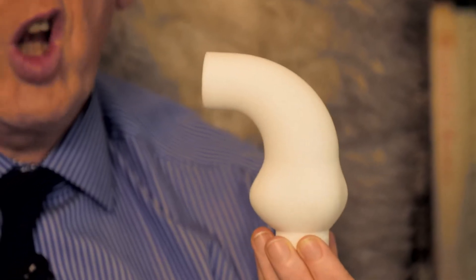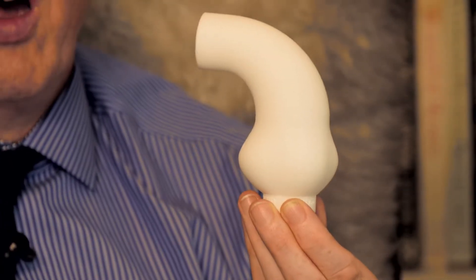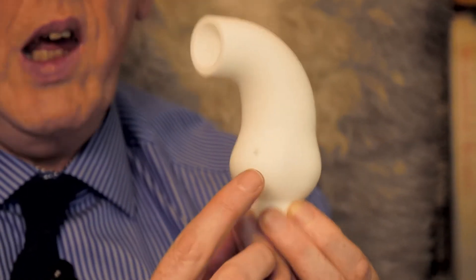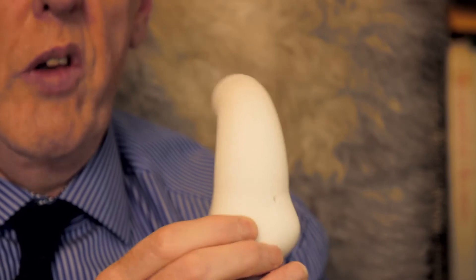The basic idea is fairly simple. We produce a model of the patient's aorta — these are all entirely different and bespoke to each patient. We produce these models by taking a standard CT study done in ventricular diastole, feeding that into a bespoke piece of computer-aided design code which then produces the model. That's then sent to a standard 3D printer rapid prototyper to produce a hard model of the aorta. This includes all of the morphological features of the aorta from the AV junction right up to the brachiocephalic artery. The coronary ostia are marked on the implant as well.